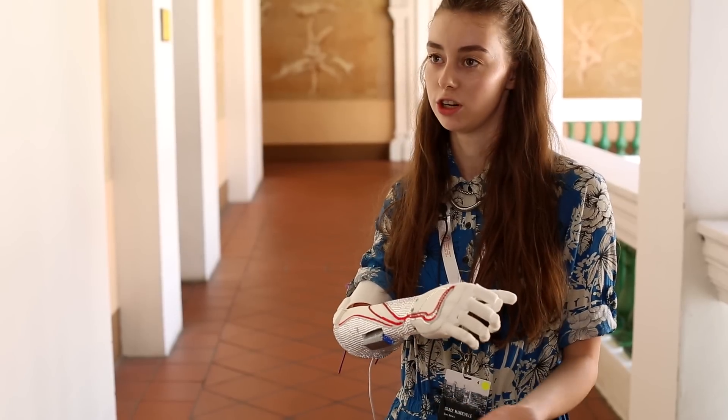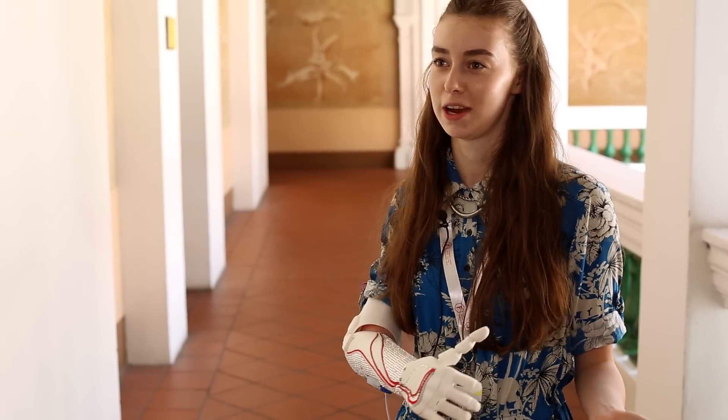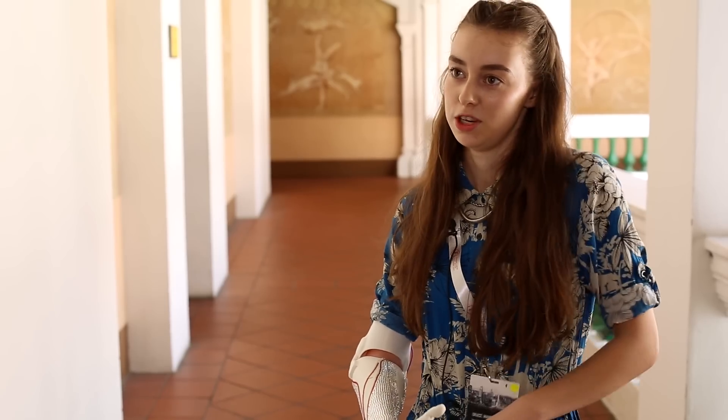This is the second time I've actually put it on. Last time I put it on, I literally put it on two minutes before showing everyone else. It's so easy — it's literally just muscles on my shoulder, and we use them every day.